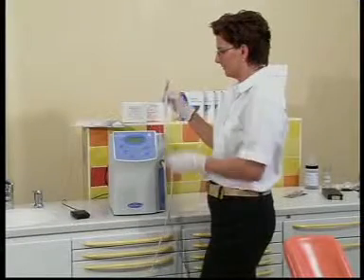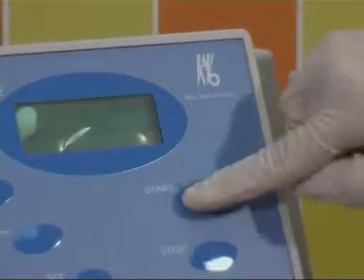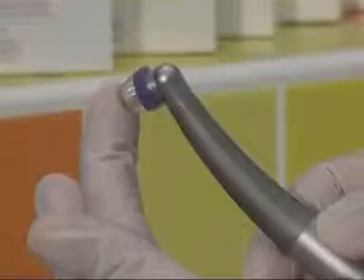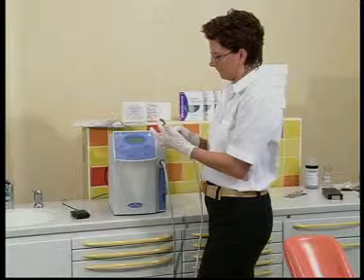We are now ready for the first test run. Switch on the unit's main switch — you'll see a self-test being run on the screen. If the test is successful, the main menu appears on the display screen. If you now press the start button or operate the foot switch, the pump turns on. If there is a closed air circulation — that is, a vacuum — treatment can begin. You'll be shown how to operate the HELOzone unit in the next chapter.